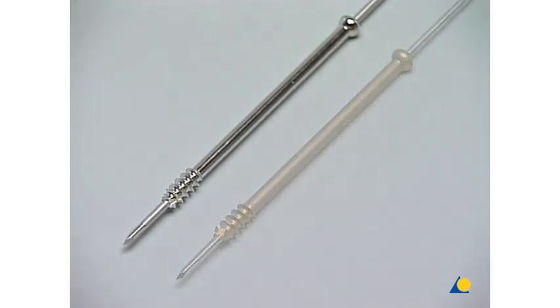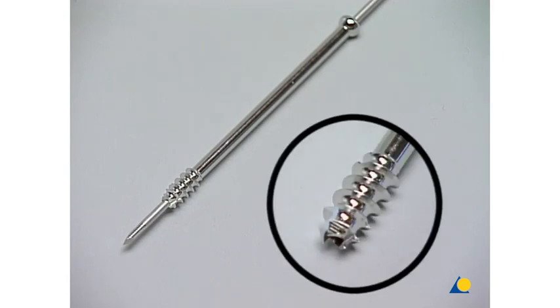The tip of the screw has a new design with a self-drilling and self-tapping flute, which allows introduction of this screw in not-too-hard bone without any pre-drilling.